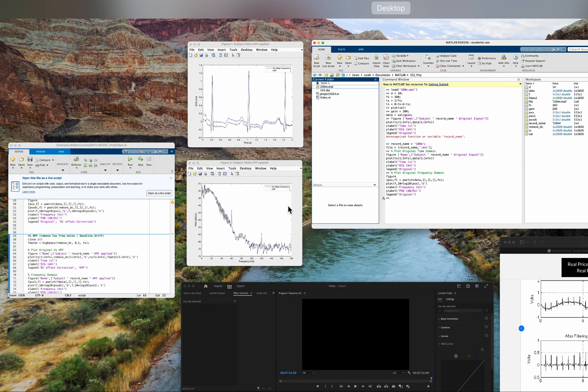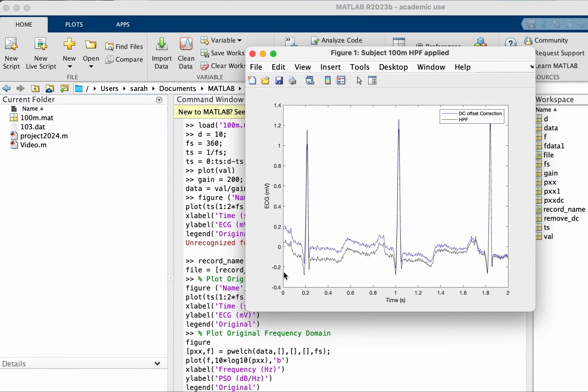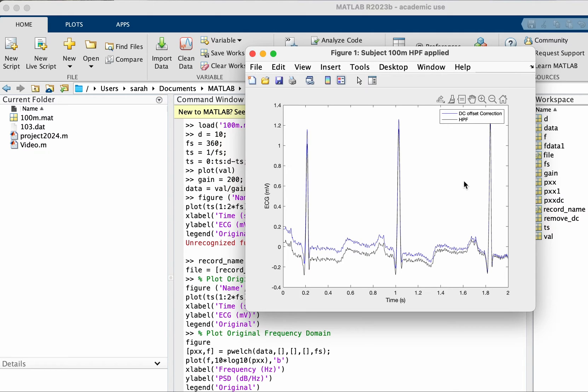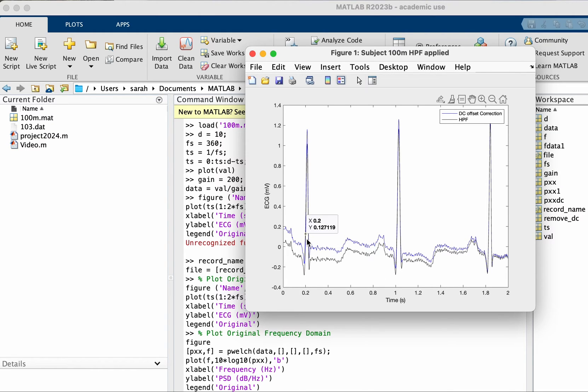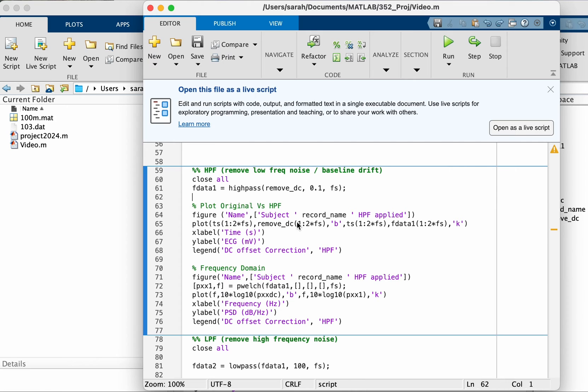It's just in the portion we picked here for the first two seconds. The first QRS complex is a bit off, like it's going a bit up and then it went down. Now after the high pass filter, you can see this wave there is not much change to it. This one was corrected by moving it down more than the others, so now they're more or less starting at the same baseline, they're not going up or down.